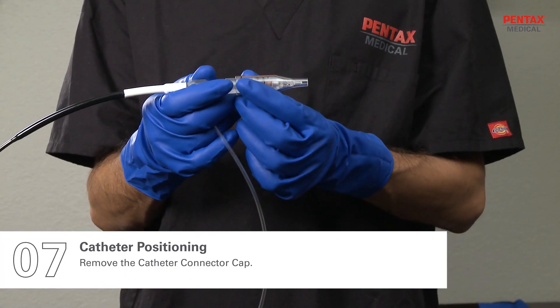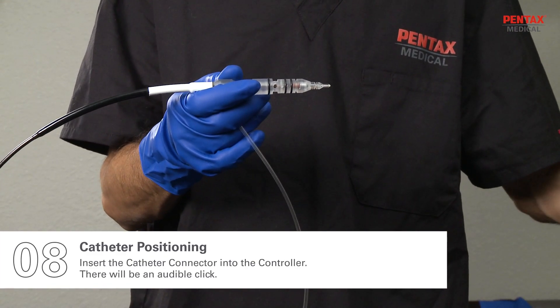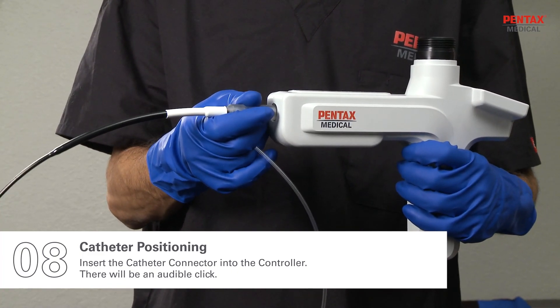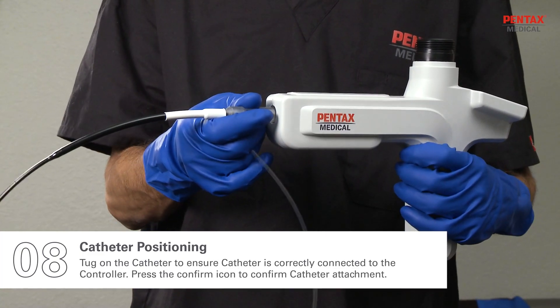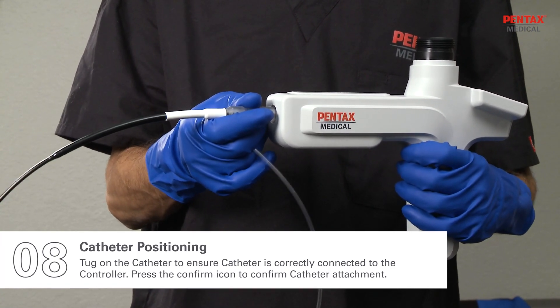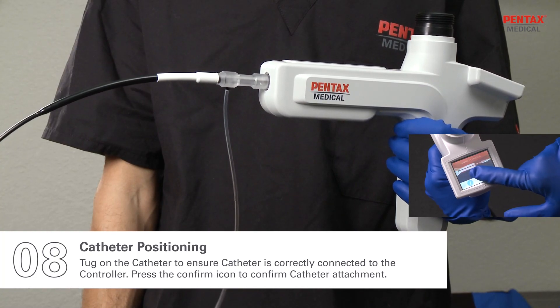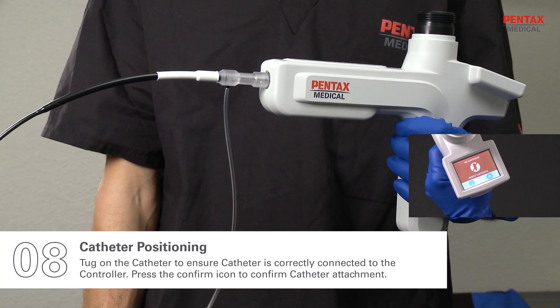Remove the catheter connector cap. Insert the catheter connector into the controller. There will be an audible click. Tug on the catheter to ensure it is correctly connected to the controller. Press the confirm icon to confirm catheter attachment.